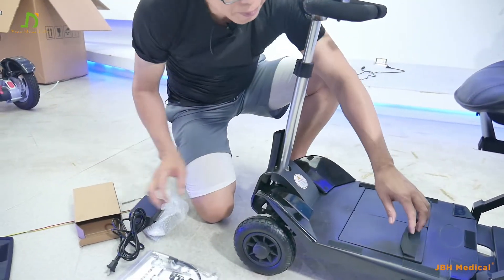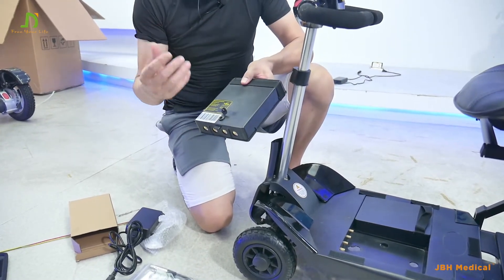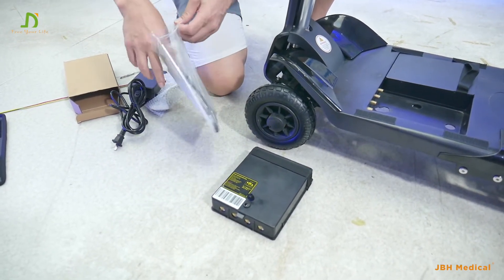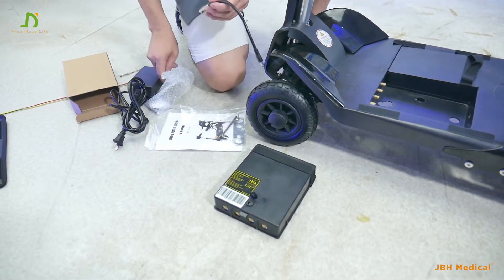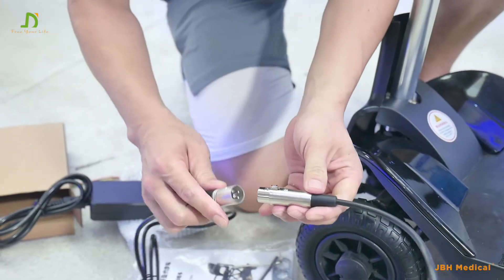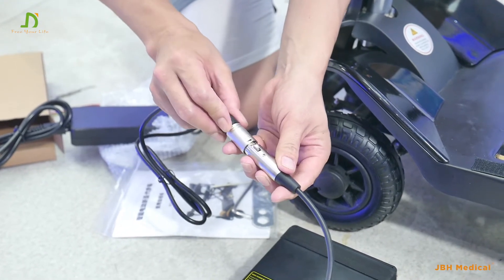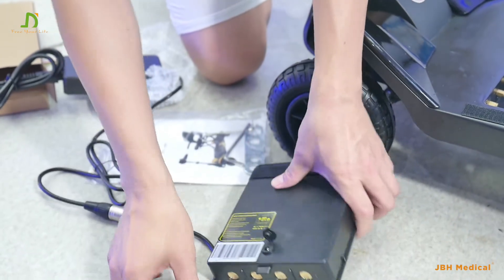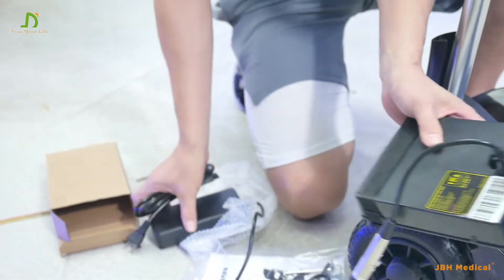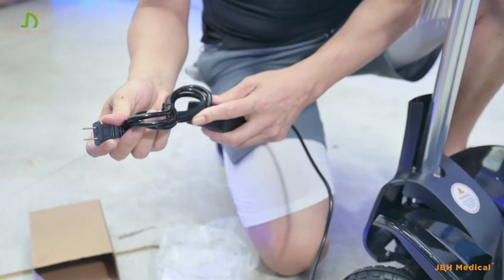The second way: you can simply take the battery out. This allows you to take it inside the room. A cable is required — make sure to connect the cable here, with the arrow aligned to these parts. Then you can take the battery inside your room and directly connect it to the power in your home. You can charge anywhere in your house.